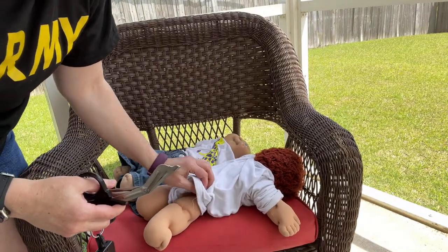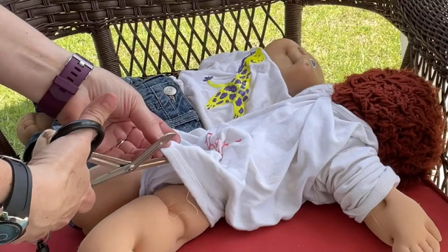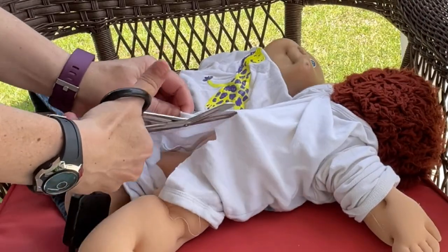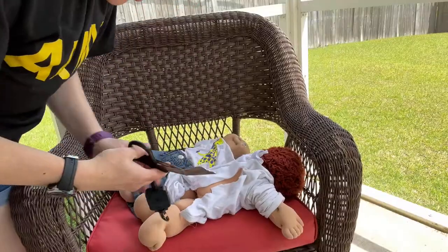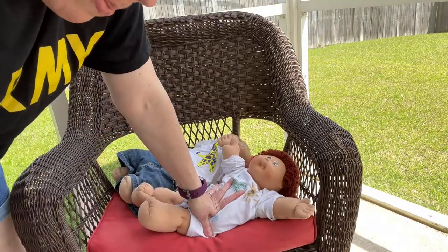For this thin type of cotton, it probably won't be too difficult — let's give it a go. Okay, so trauma shears — that's not too bad when it comes to cotton. Now I'm going to try the seat belt cutter.